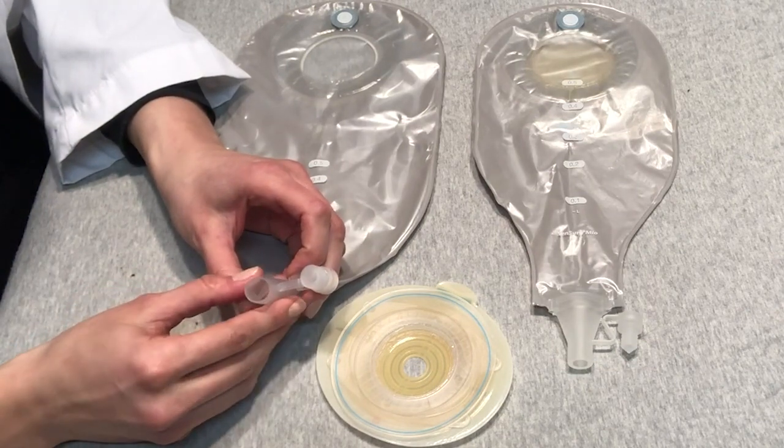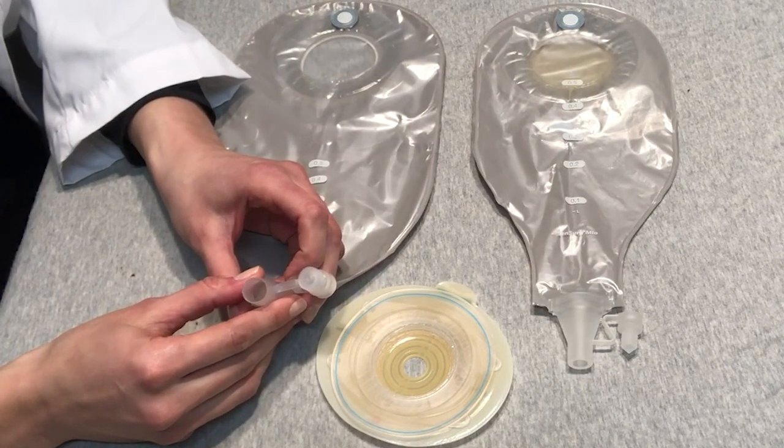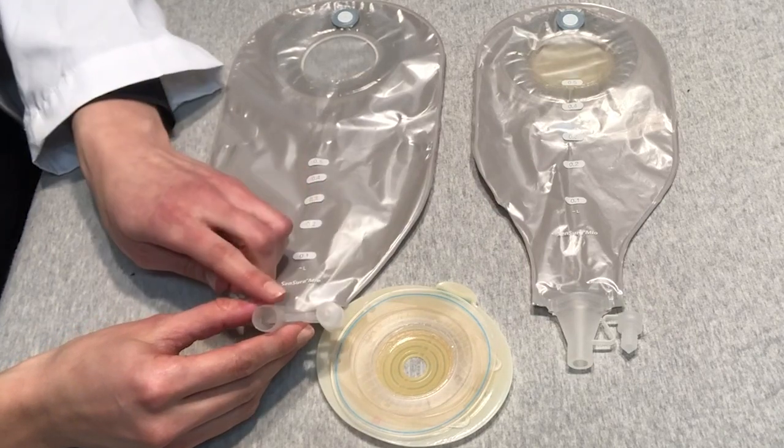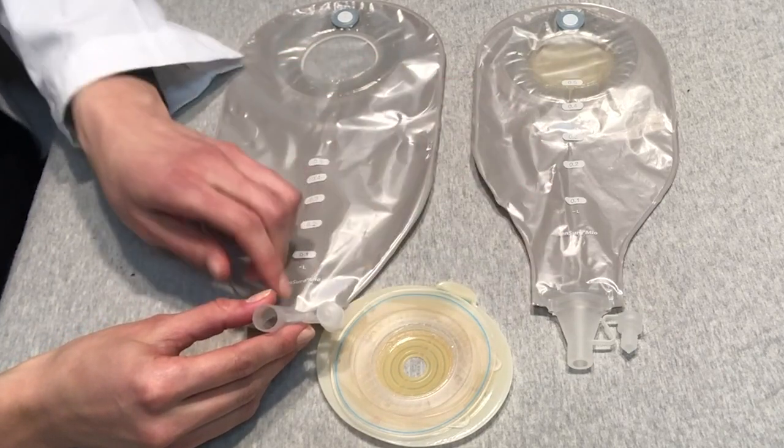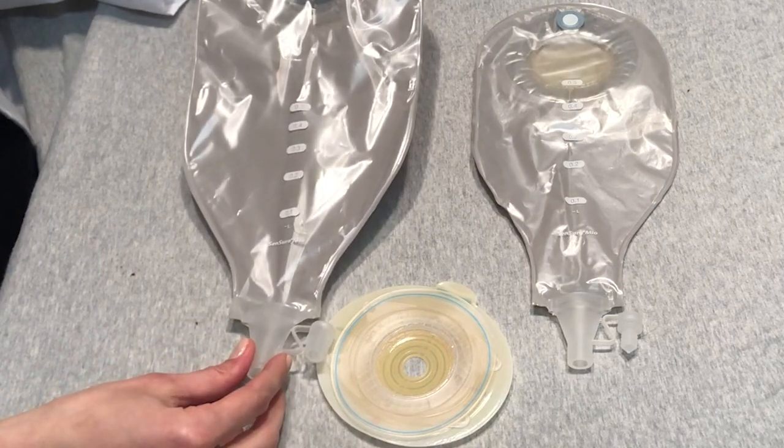So this actually can connect to our fecal drainage bag. You may not have this in your facility, but I do want you to keep in mind that there are two different kinds of outlets with our high output pouches.